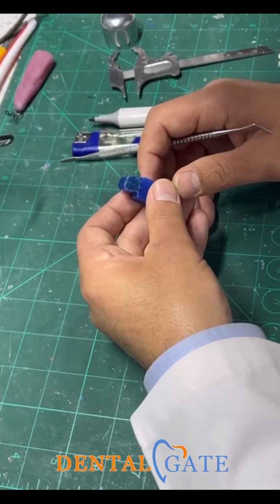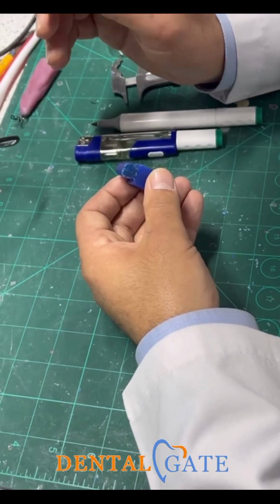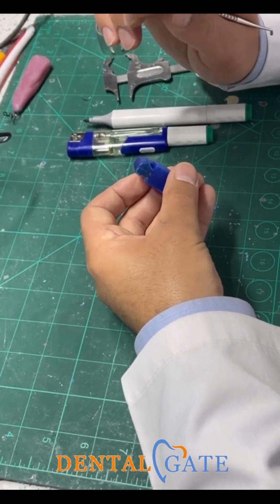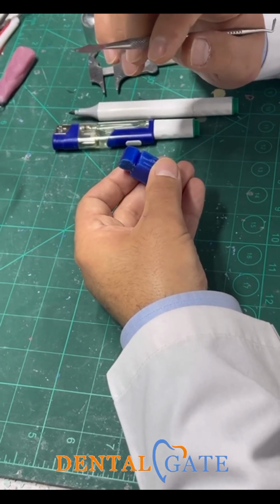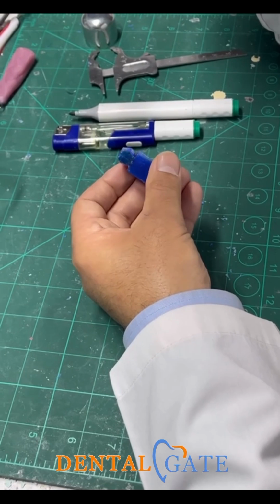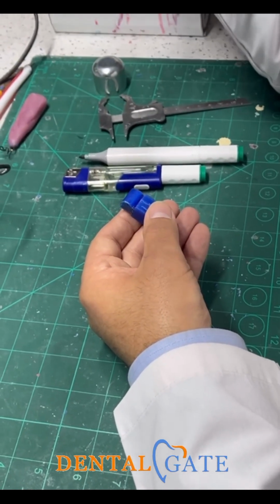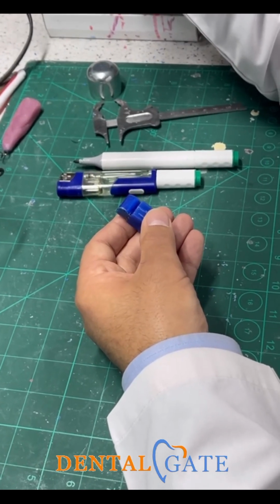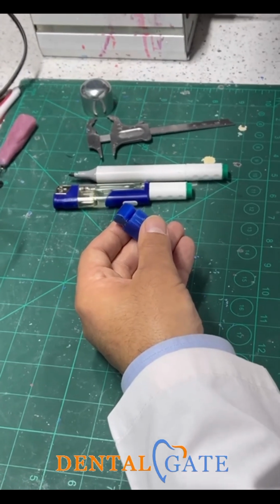What I need now is to elect mesial or distal. There is no big deal with this selection, to draw the outline, to assign the outline from the distal or the mesial. Because I will make it 1D from the labial and I start with the 2D. So my hand, my carving, will add 3D and 4D. Until 3D, I will add the features upon the correct outline.